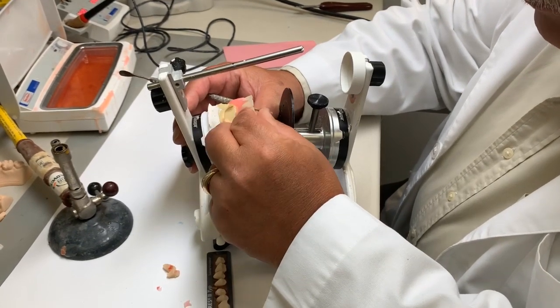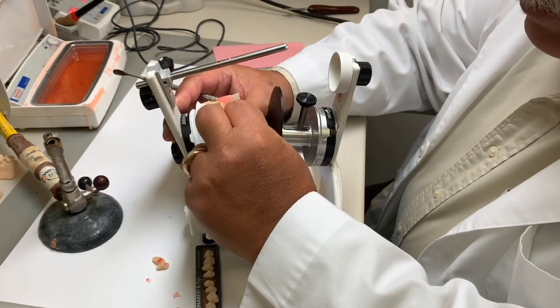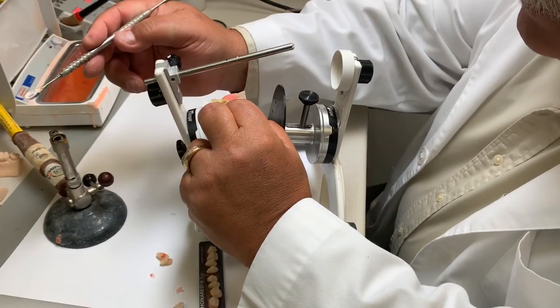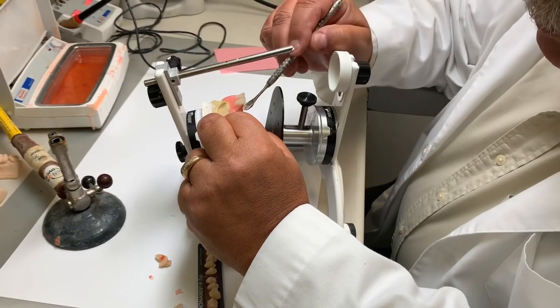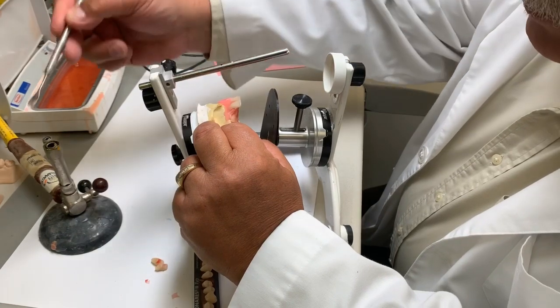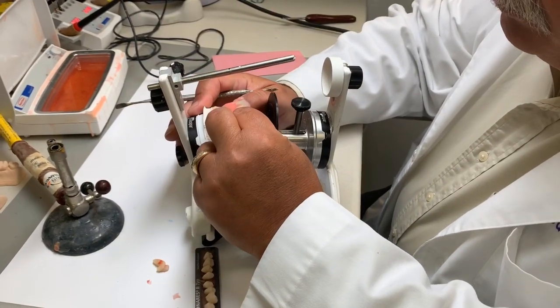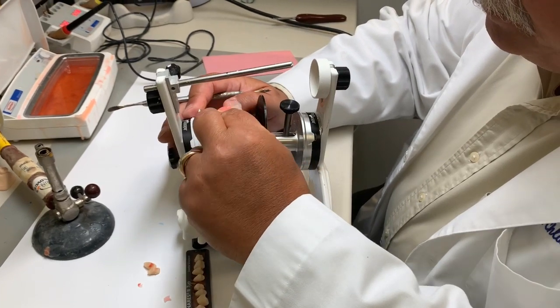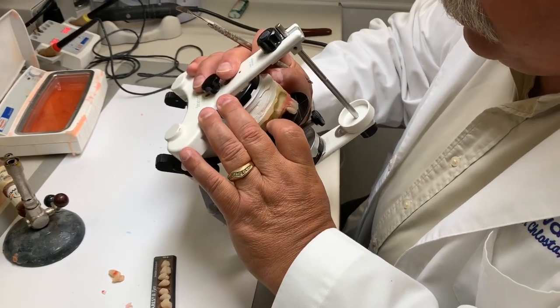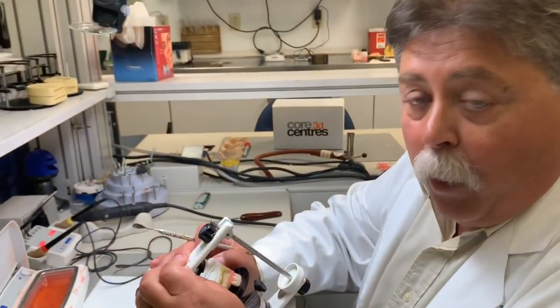Now we can characterize the setup. The teeth naturally will have a little bit of a natural curve to them, so they're not going to be straight across all the time. We can do that if the patient requests that. Now, if they request that and see that they don't like the outcome, since it's in wax, is that something easily changed? We can easily change it once it's in wax. Okay.